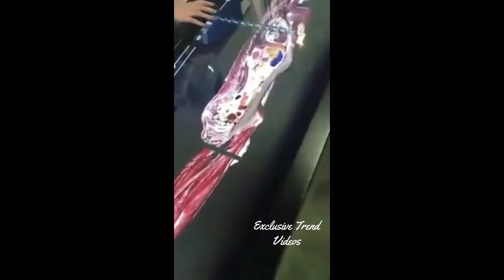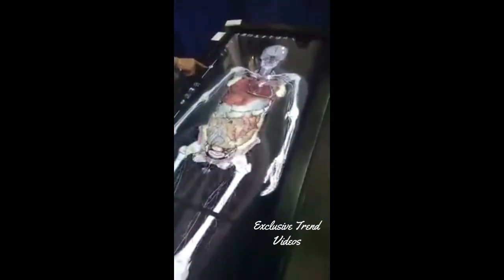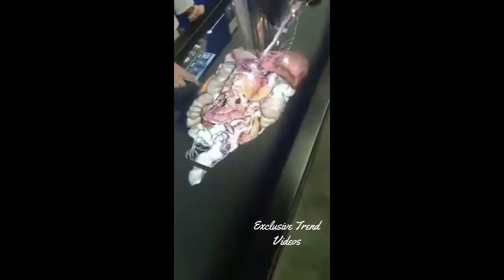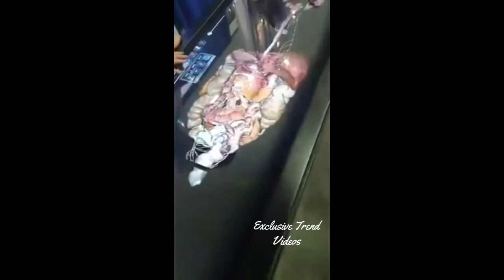You can also isolate or manipulate different parts of the system. In this case, I can start by removing the skin, removing the fascial system and other structures until I'm left with the gastrointestinal system. From here I can get a better view by zooming in, and I can also get a posterior view by giving it a little spin. I can start removing different structures and get the annotation of any structure I remove, and I have this undo button where I can bring everything back.